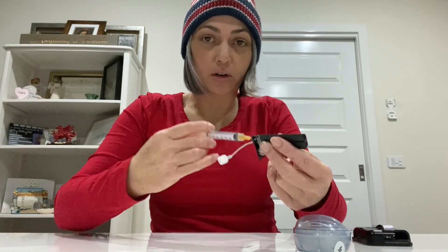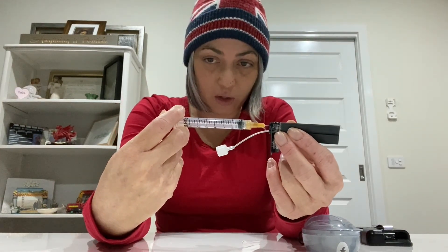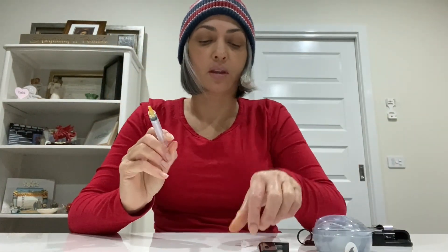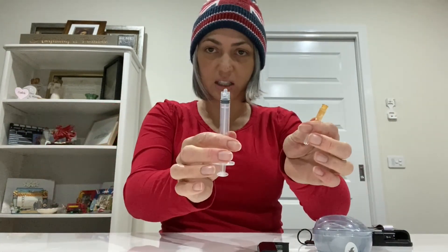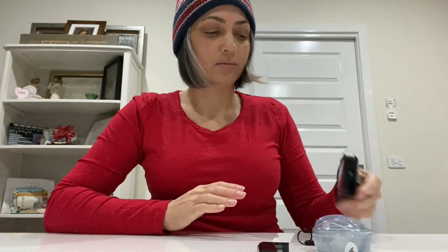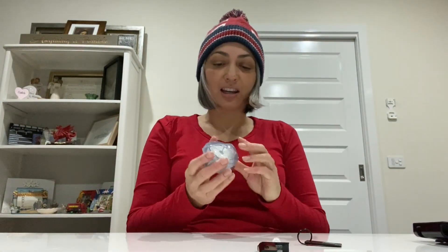You can kind of hear it — there's a little air bag that fills up in there, that's what that noise is. Keep the pressure on and done. I always disconnect the syringe before throwing it in the bin. The pump is alerting that there's no cartridge in it yet.